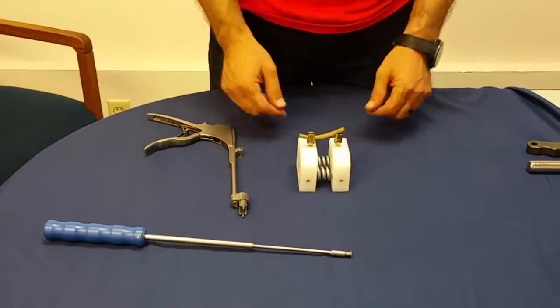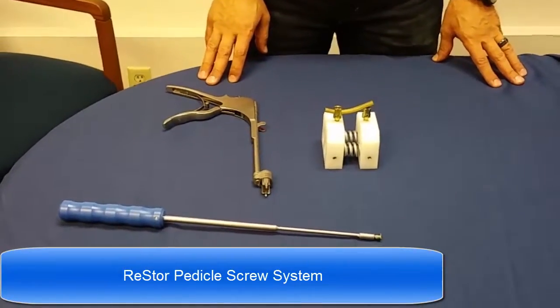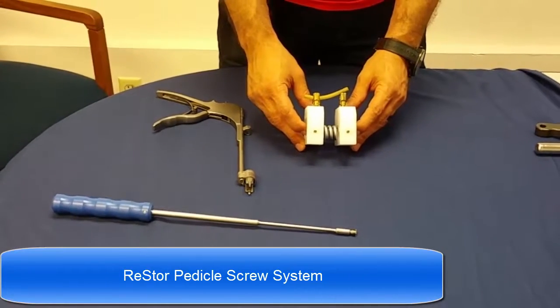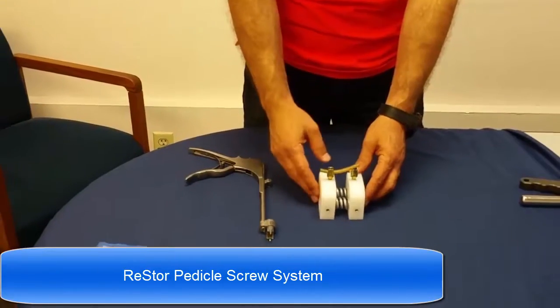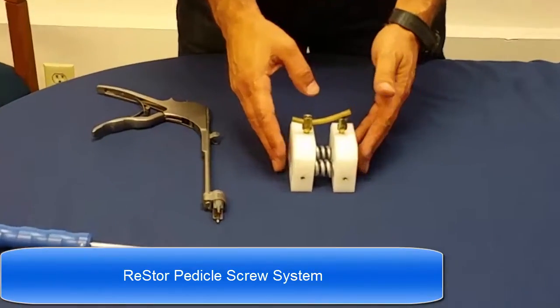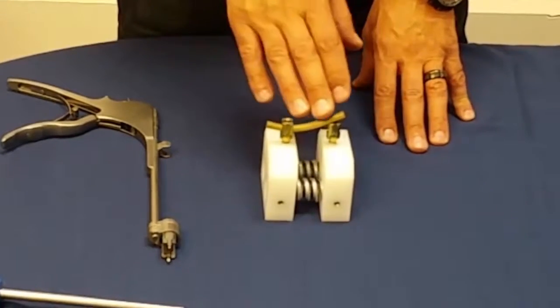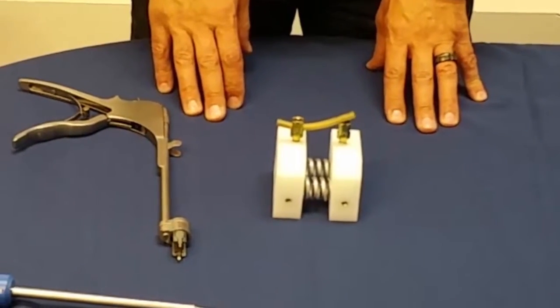We are demonstrating the rod reduction as part of the restore pedicle screw system ability to impose a lordotic restoration based on the curvature of the rod being used.